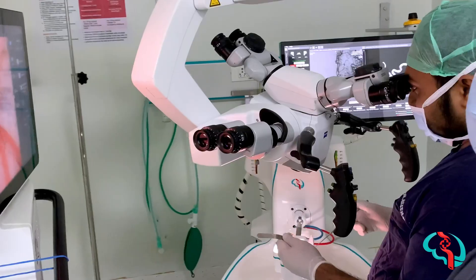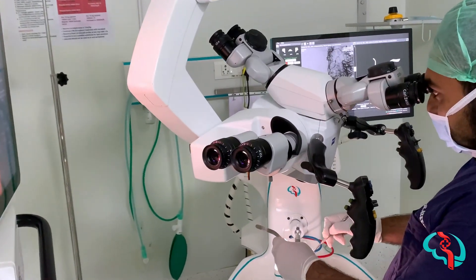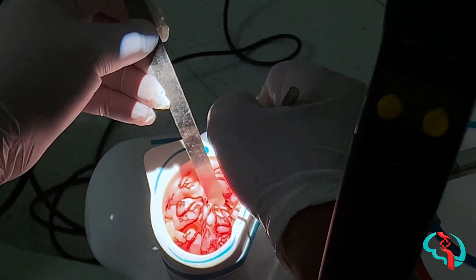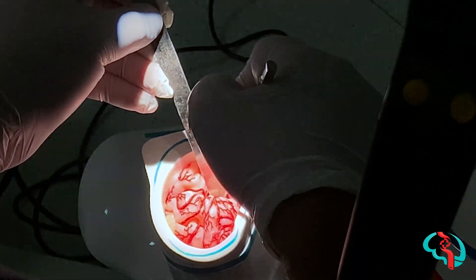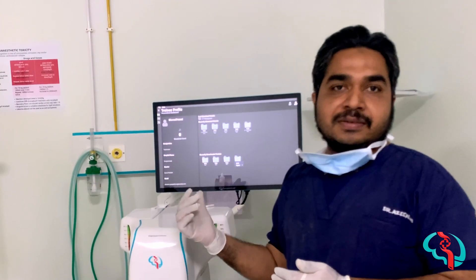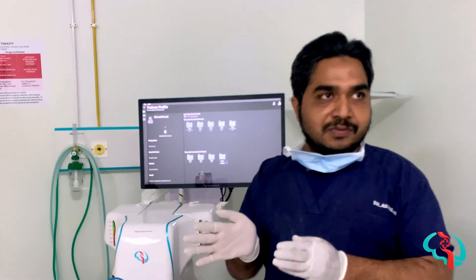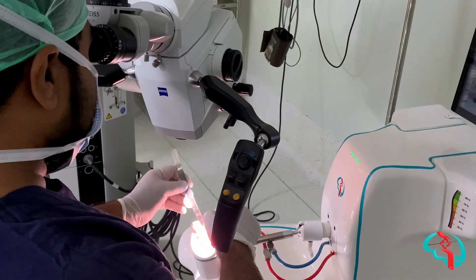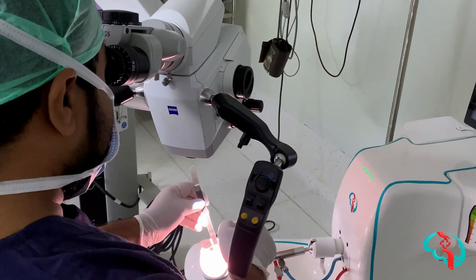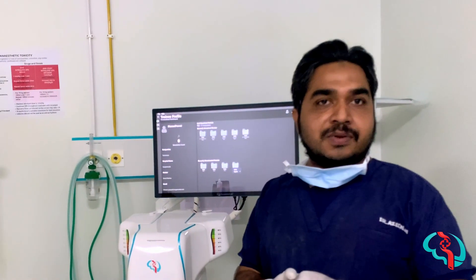There will be some difference, but you can feed the patient data — that is, the DSA or angiogram — into this trainer. Just prior to surgery, if you run a small dissection for 20 minutes, it can actually reduce the overall surgical time.